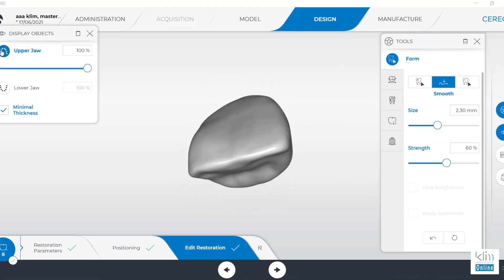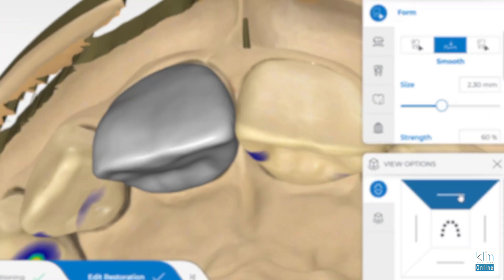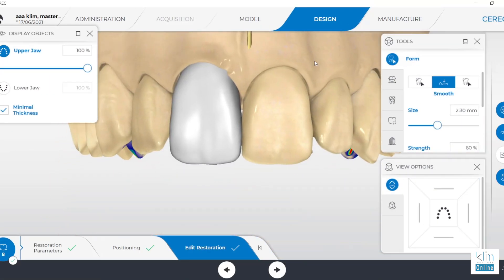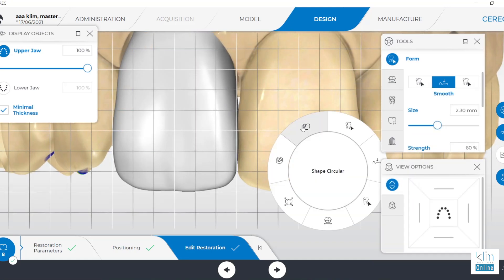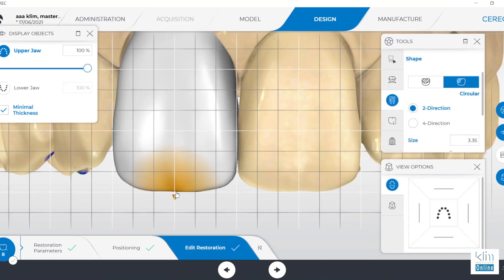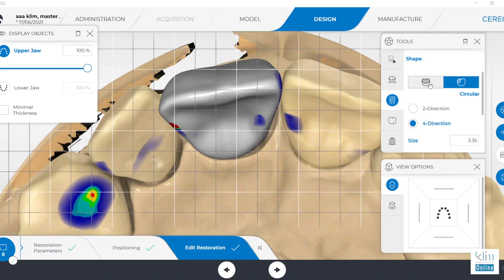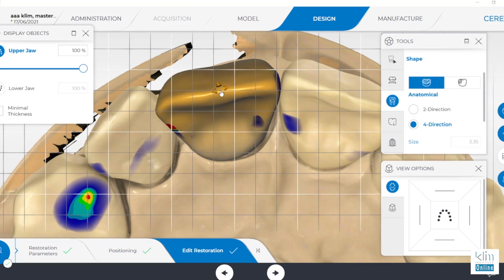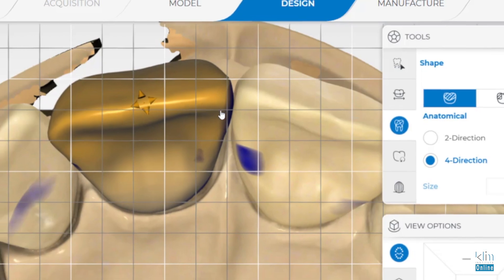Number one is now that we have view options back in the software, it's really easy to set up the model axis and then find that model axis again with the 2D grid to make sure we're getting the alignment, shape, and measurements of our tooth the way we want it. Number two, let's bypass the position tool with another tool that works better — the anatomical four-direction tool. That tool allows us to move the tooth in the proper tip and torque without messing up the emergence.